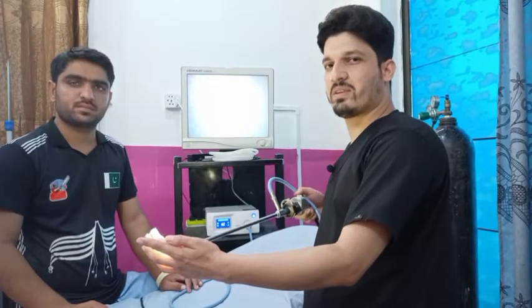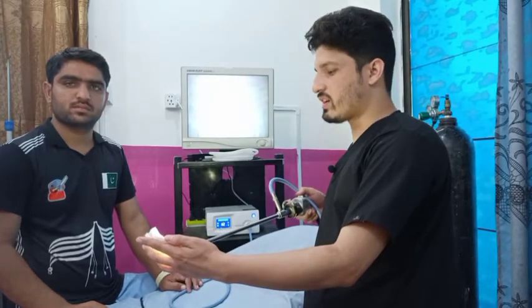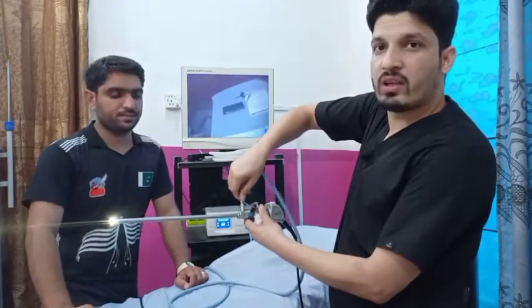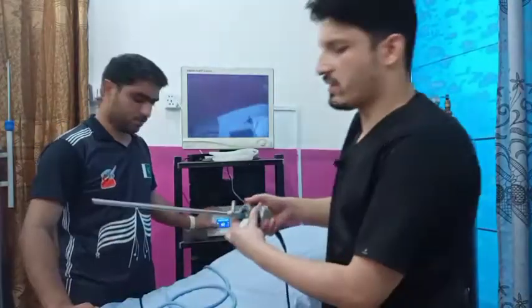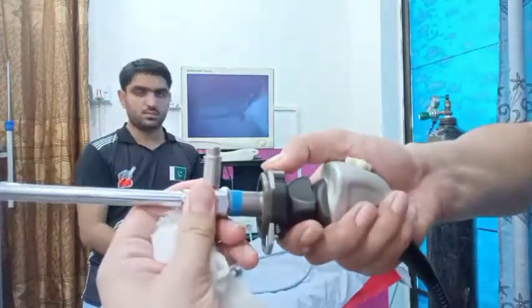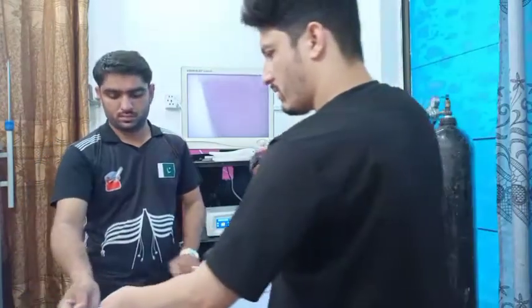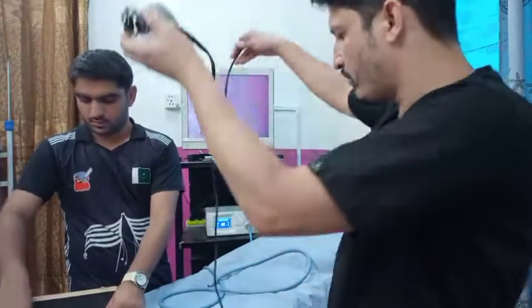Remember: don't press the W button — the white balance button — inside the abdomen of the patient, otherwise the white balance will be disturbed. To turn off the camera, first remove the light source very gently, then press and remove the optical coupler — it will disengage.